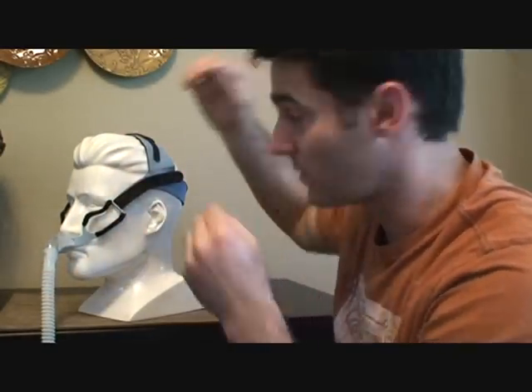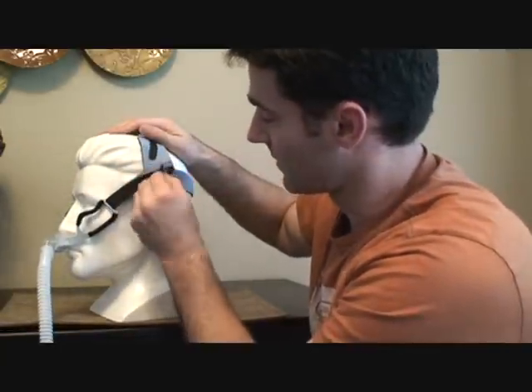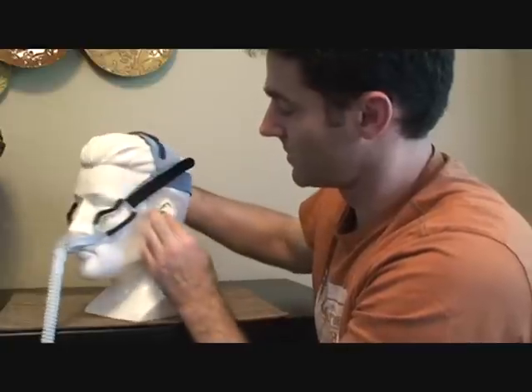If you feel like it's kind of riding low, you want to tighten the top to pull it up higher, as well as these side straps — tighten and reattach. You do it on both sides.